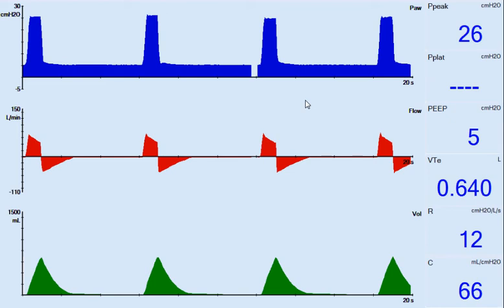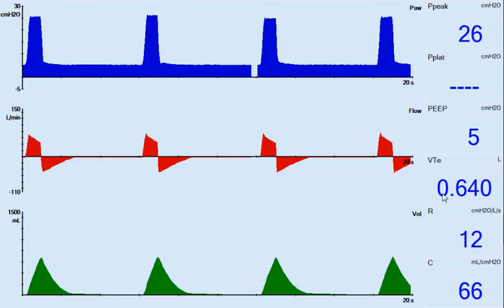This video clip demonstrates premature termination during pressure control ventilation, or actually adaptive pressure control ventilation. Notice there's a starting target tidal volume of around 650, and it takes approximately a peak pressure of 26.